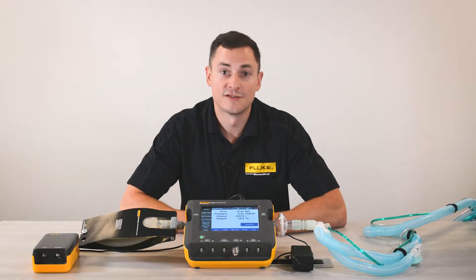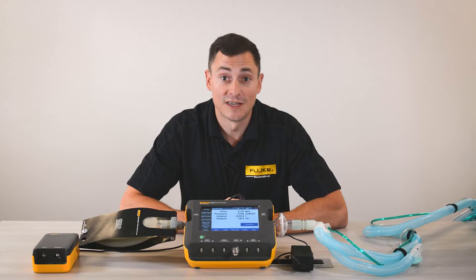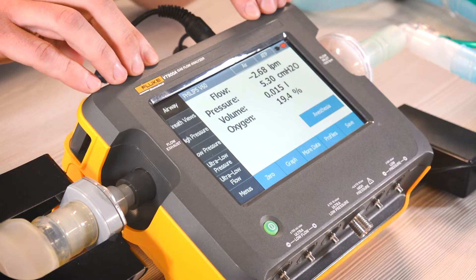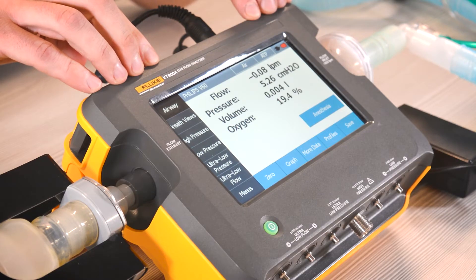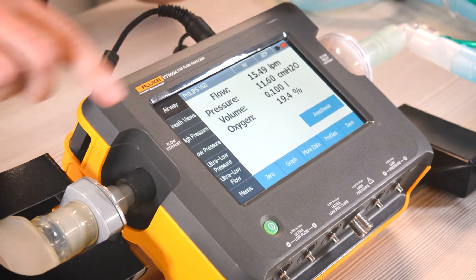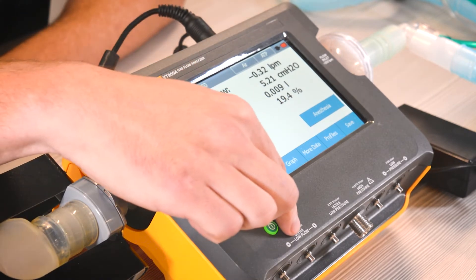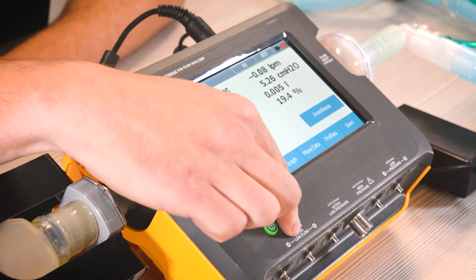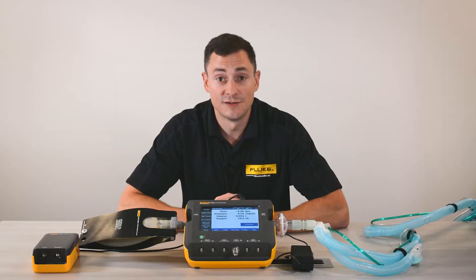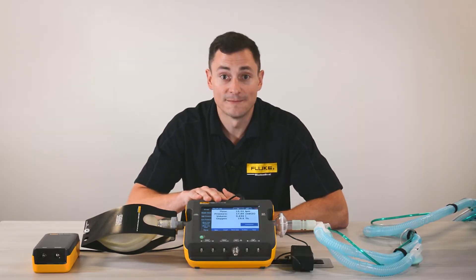Flow meters are something else that you can look into replacing with your VT gas flow analyzer. Right here I have airway flow connected, which covers both high and low flow, and we also have ultra low flow down to 750 milliliters per minute. So depending on which flow meters you use currently, you might be able to replace them all with this one unit.